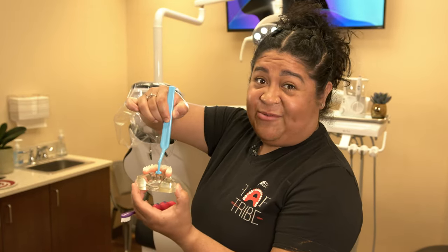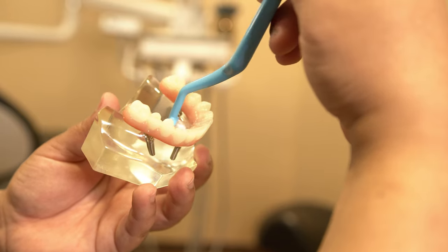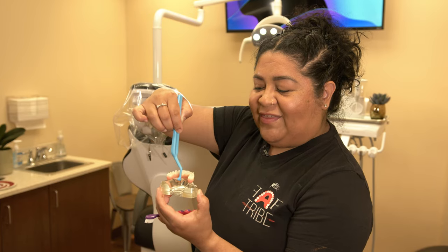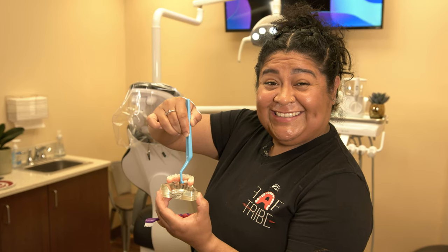The way you use the angled toothbrush, specifically on the bottom but really anywhere, is to just position it right at the junction — you're already there. There's no need to bend your wrist, no need to give yourself carpal tunnel, no need for anything else other than getting a proper clean.